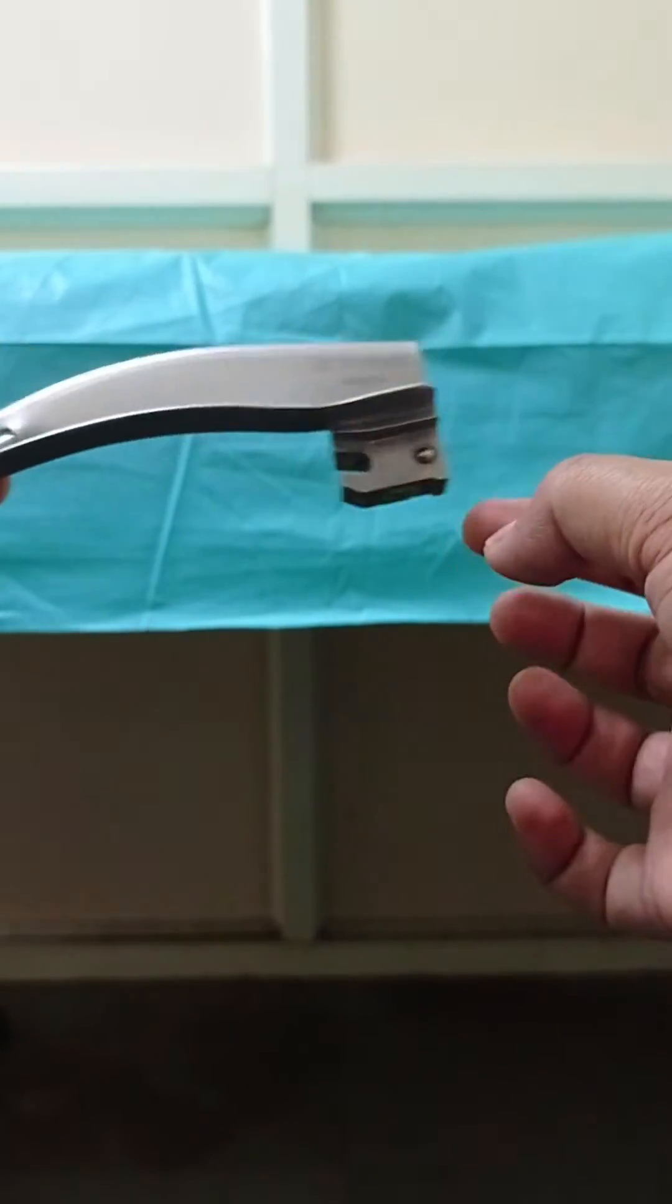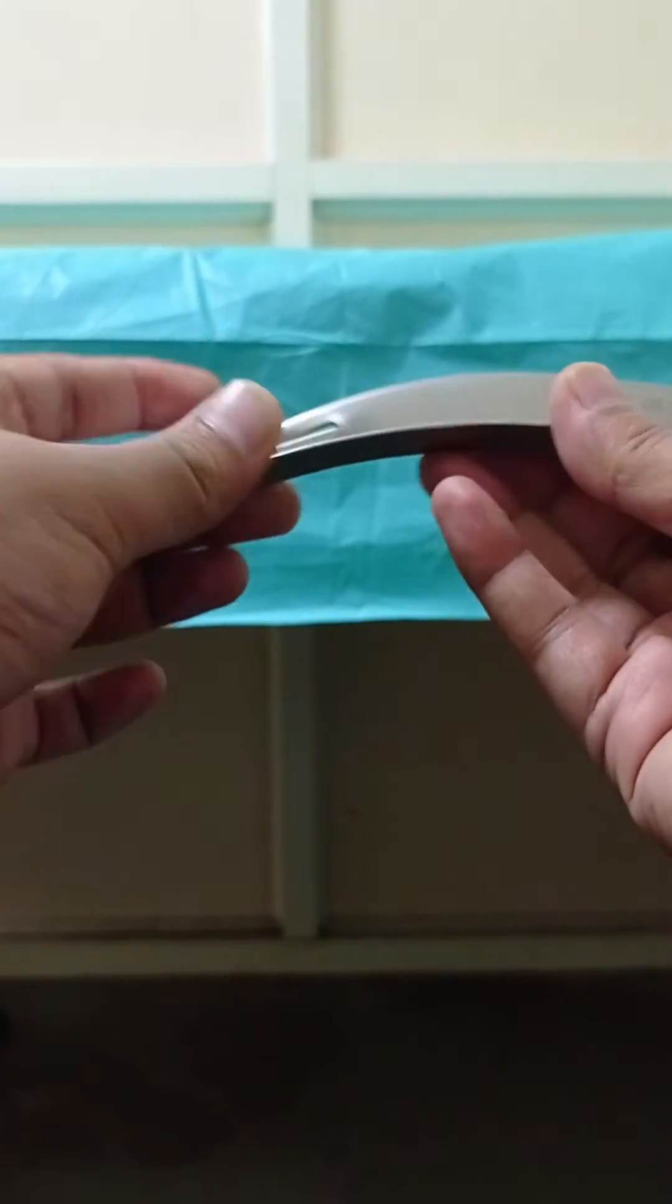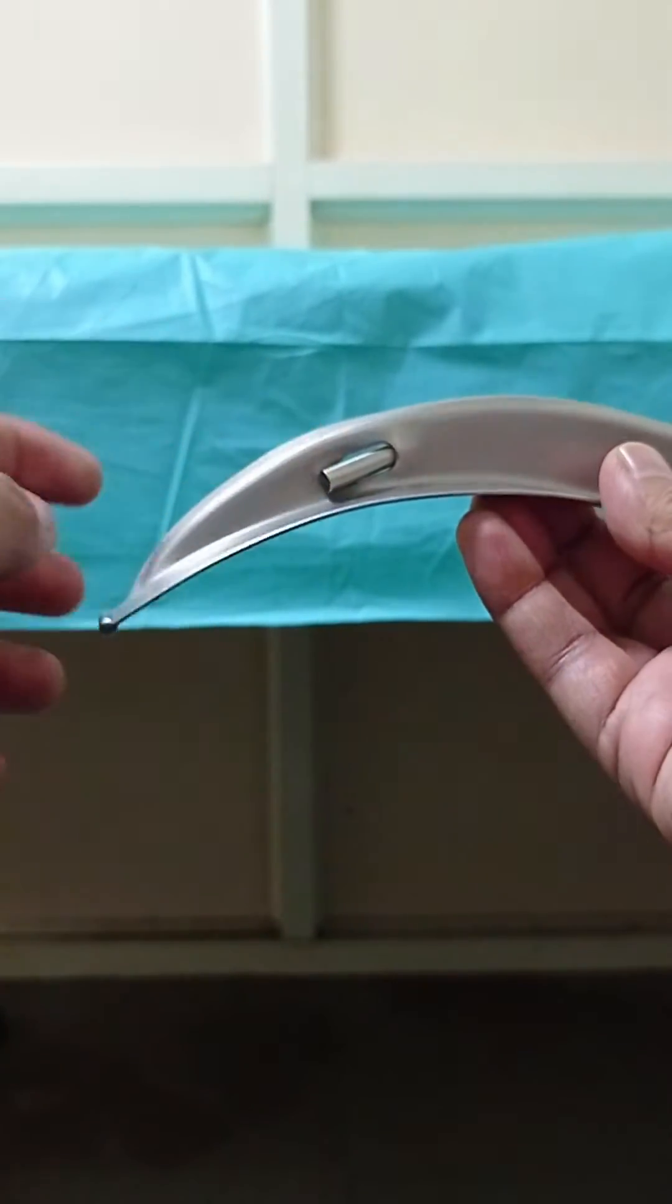This is a hook on base, which is attached to the bar on the handle. This is the light bulb.